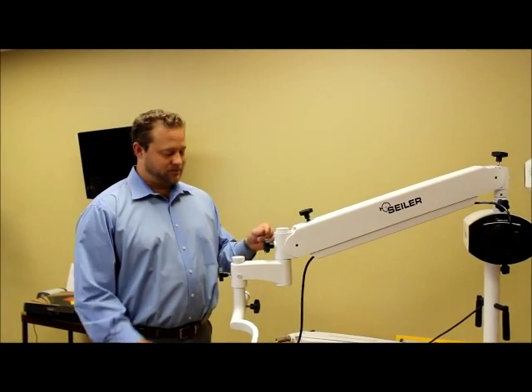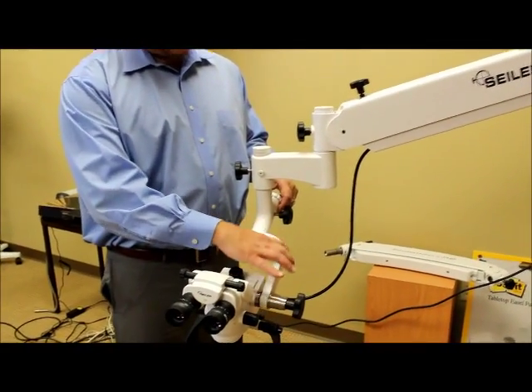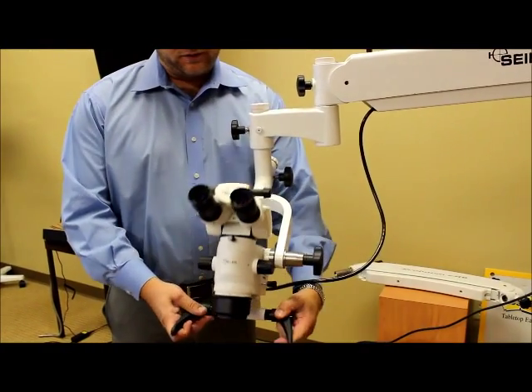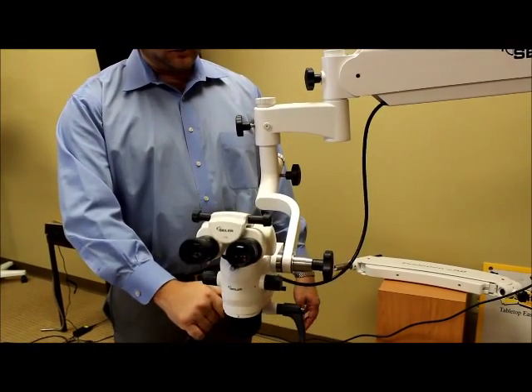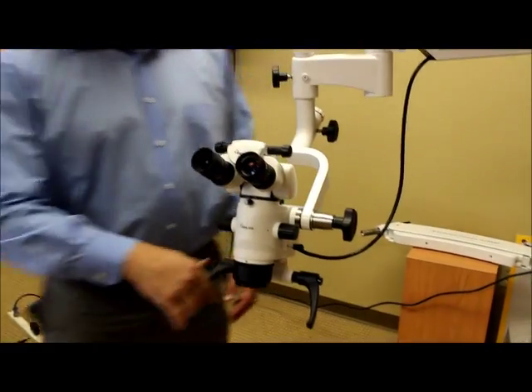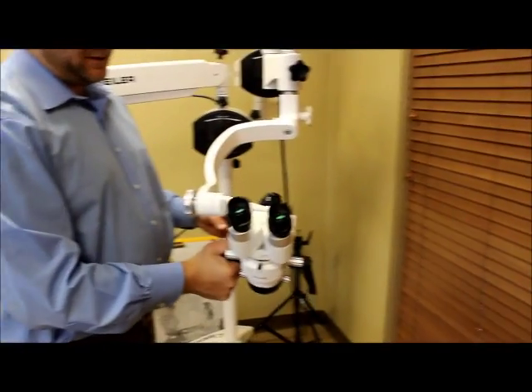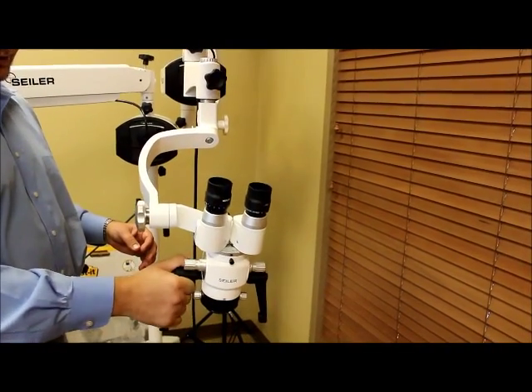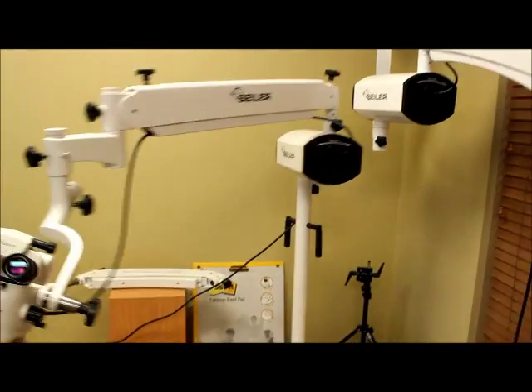The other change that we did was to the actual angle arm system, to do the movement of north and south. As you can see, it's an absolute beautiful, flawless movement now. Compared to where we had before this change, where you had a little jump movement — still nice, but not as optimal as the new angle arm.